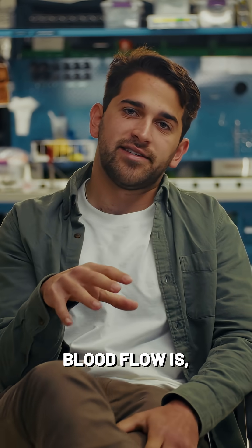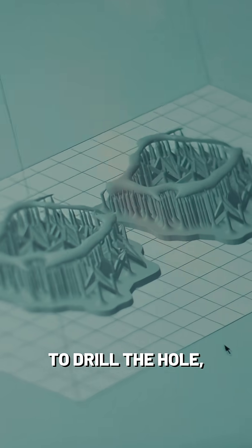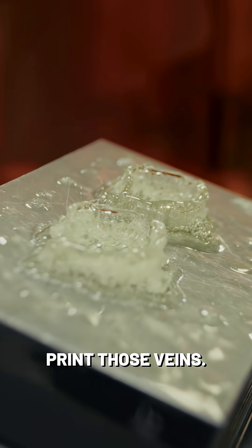You can see where the blood flow is. And so from the scan we can extract that region right where we're going to drill the hole and then 3D print those veins.